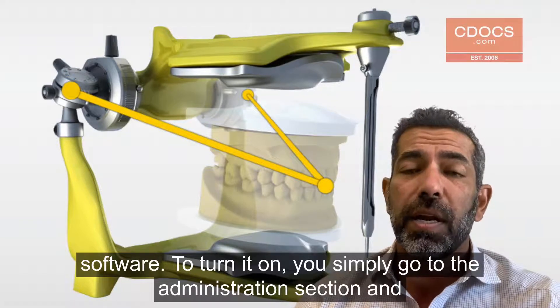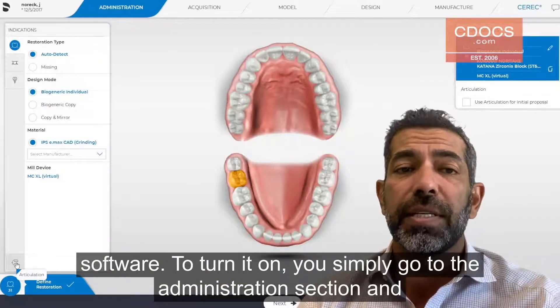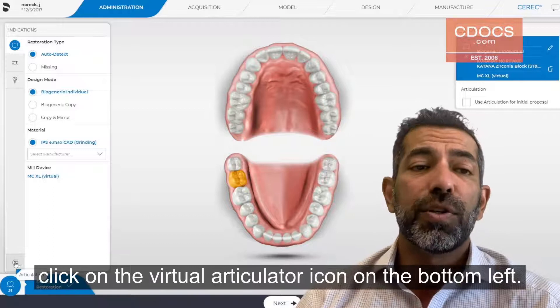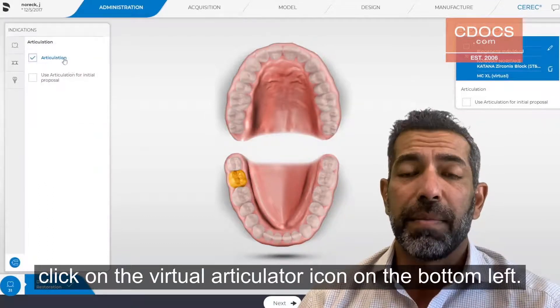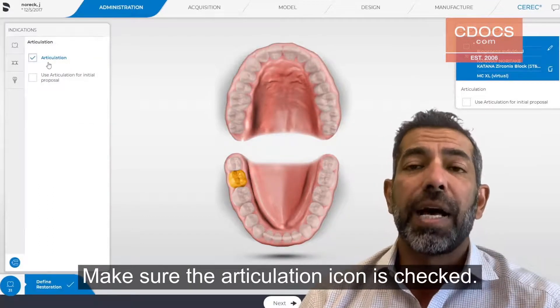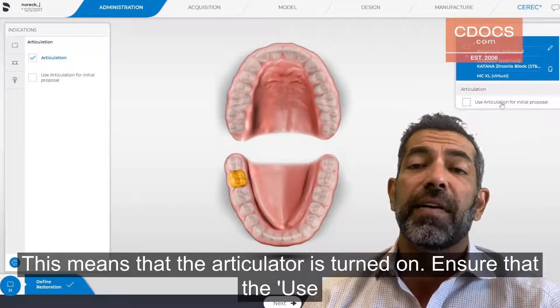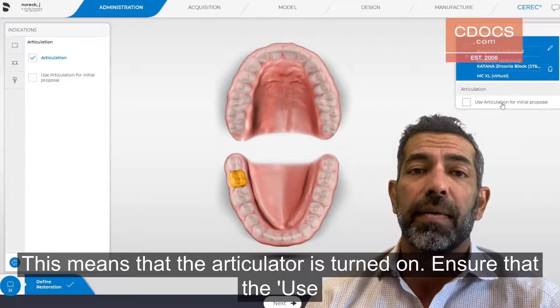To turn it on, you simply go to the administration section and click on the virtual articulator icon on the bottom left. Make sure the articulation icon is checked. This means that the articulator is turned on.